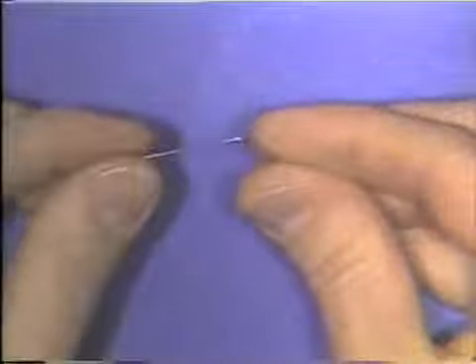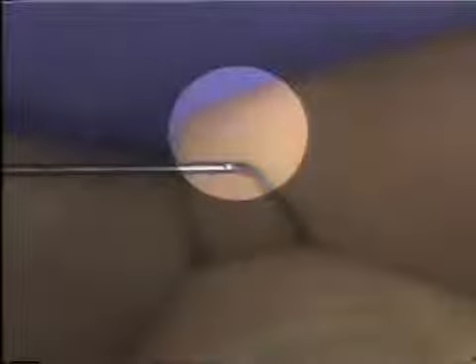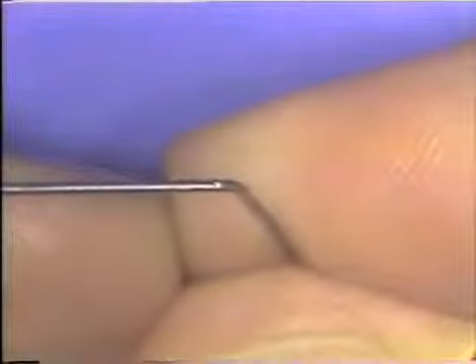Both the 201 and the 53G pliers are very useful for wire bending, but they have one disadvantage, and that is that they can gouge or nick the wire as they make the bend. A defect in the wire can be created at the spot where the beaks of the plier contacted it. Now, a nick or a gouge in the wire, as shown there, will reduce the diameter of a wire, and it may predispose the wire to breakage at the site of the defect.